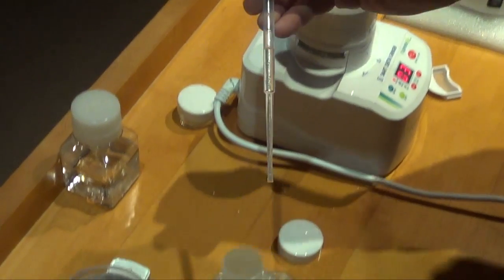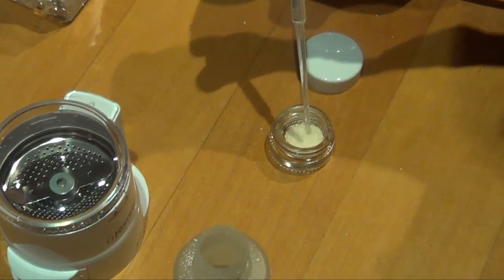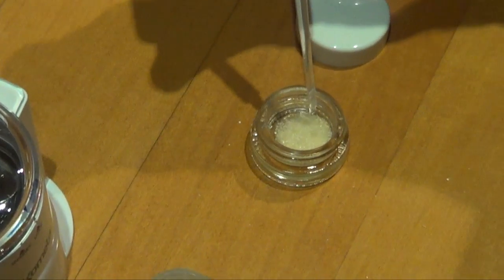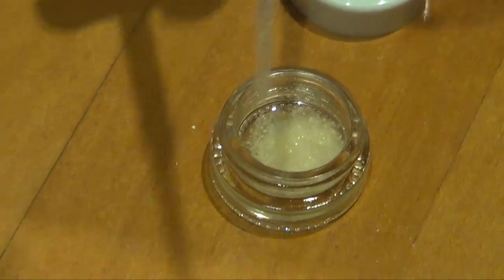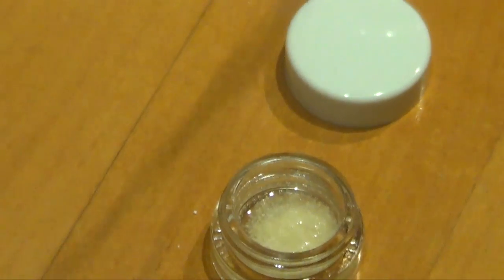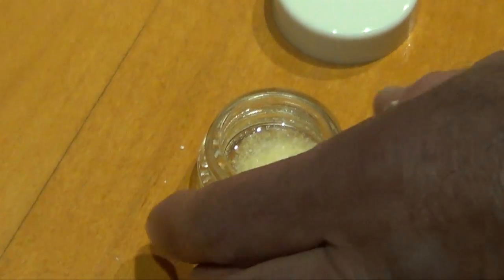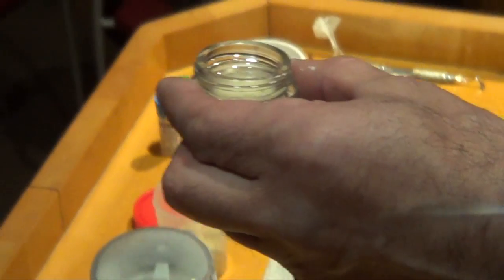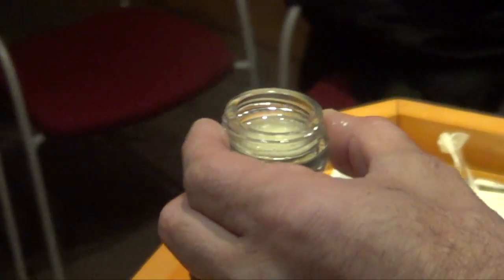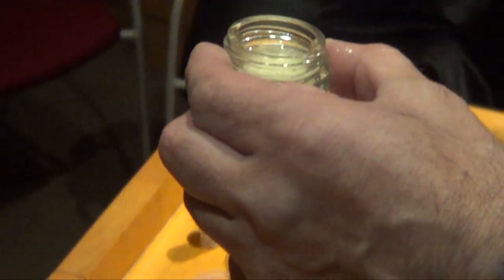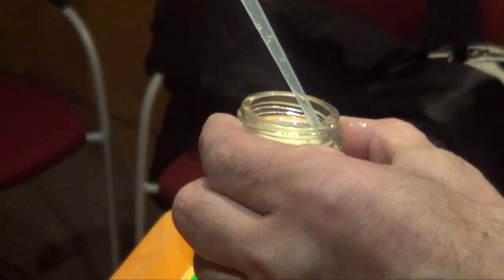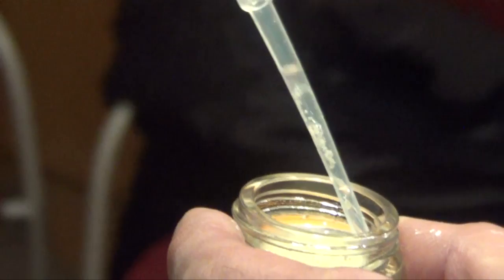The cleanser here, it has just to cover the material. Like this is completely enough. After 10 minutes, we recommend 10 minutes actually, we recommend 10 minutes, we can use the same drawer to take out the cleanser.